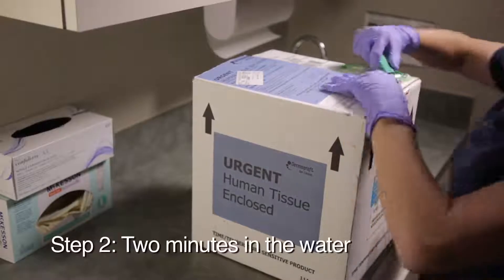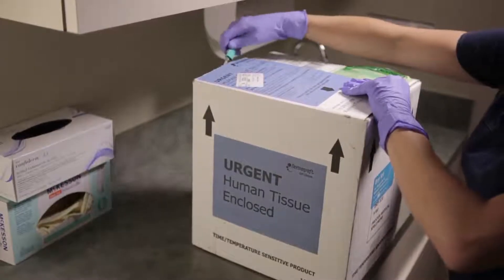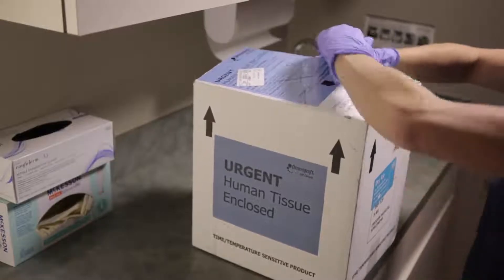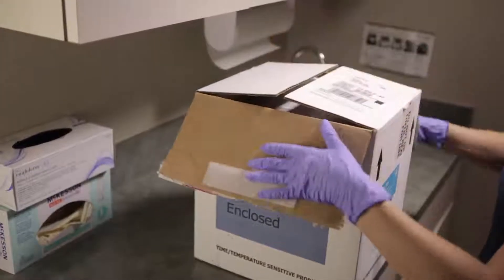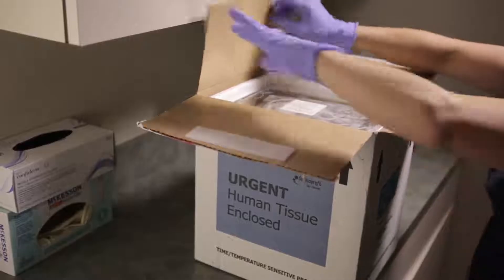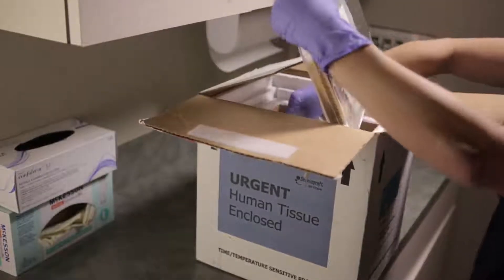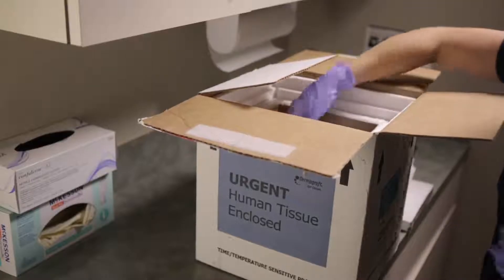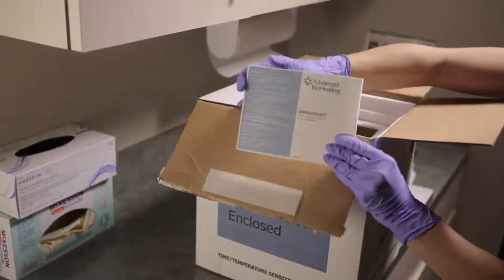Step 2: Two minutes in the water. With the water tub ready, it is now time to remove the Dermagraft from the shipper or freezer, tear open the cardboard box, and remove the silver foil pouch. Insulating gloves are provided within the thaw kit if direct contact with dry ice becomes necessary.